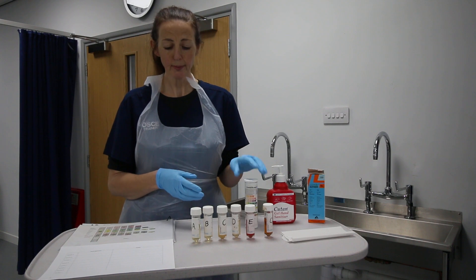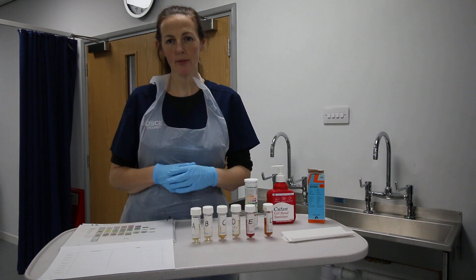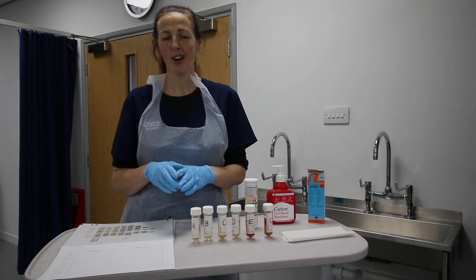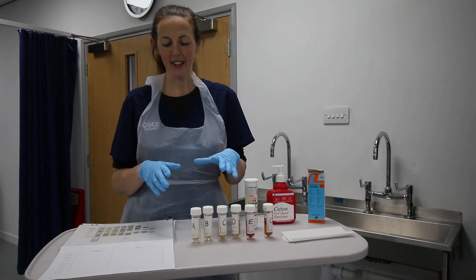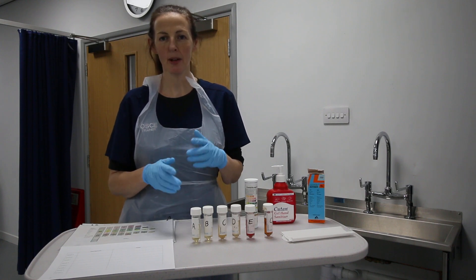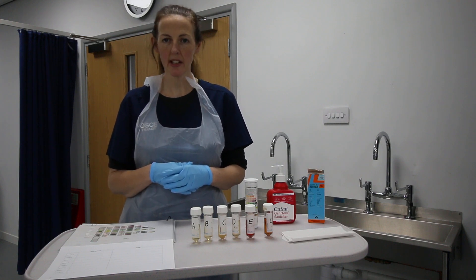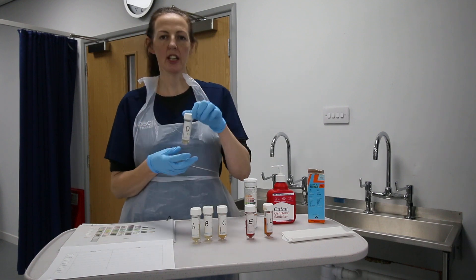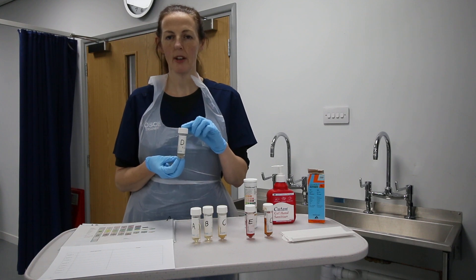There are lots of samples here that give different readings. I'm going to put a little menu on the WhatsApp group if you want to practice at home. To make it easier today, we're just going to do one sample — sample D — which is a proteinuria sample. This sample has been made up to mimic urine that has protein in it.